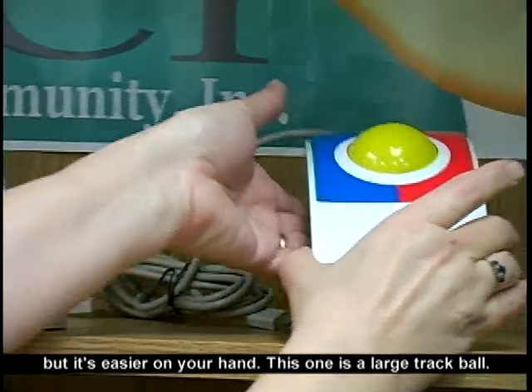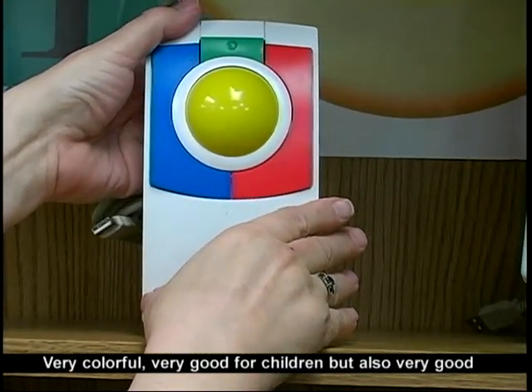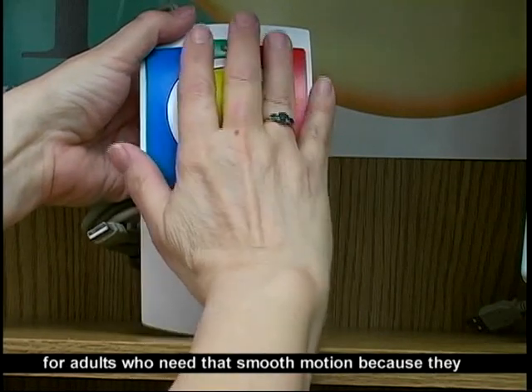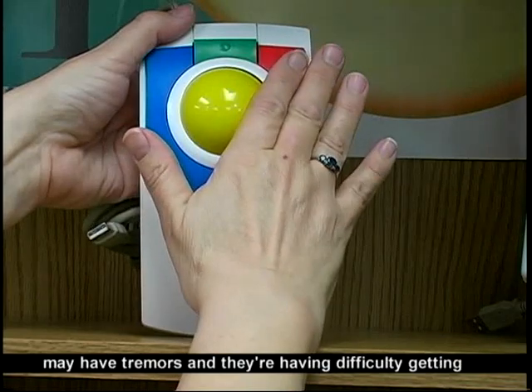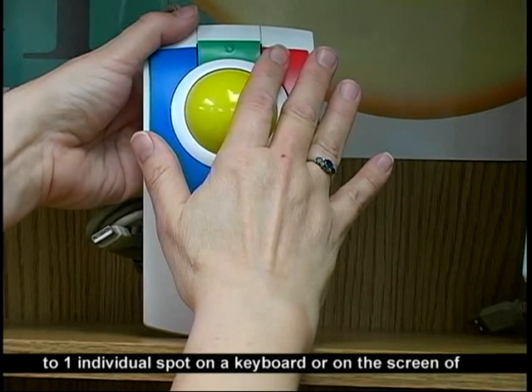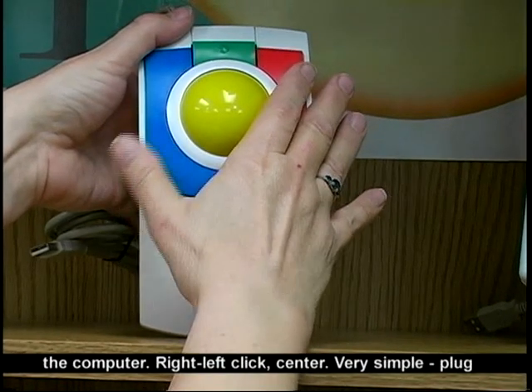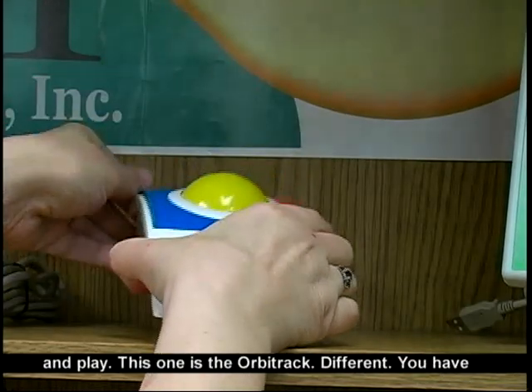This one is a large trackball — very colorful, very good for children but also very good for adults who need that smooth motion because they may have tremors and are having difficulty getting to one individual spot on a keyboard or on the screen of their computer. Right, left click, center. Very simple plug and play.